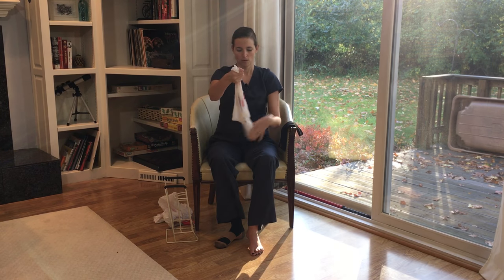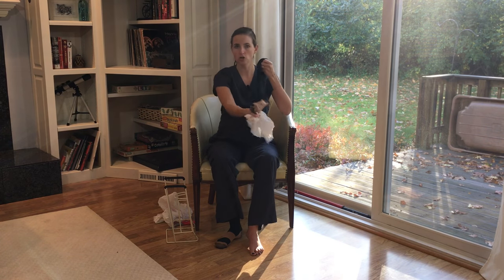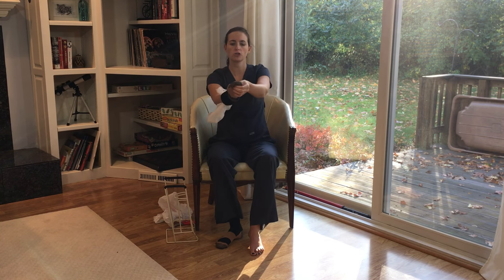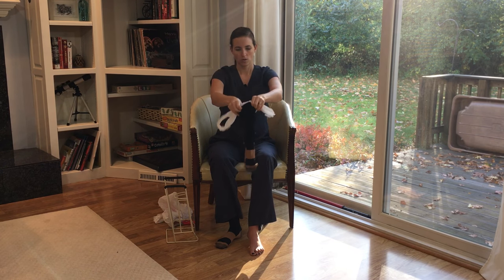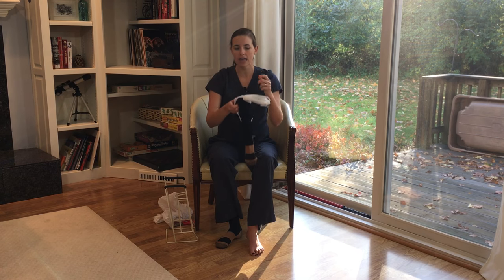So we're going to go back to that kind of shape — the hole is at the bottom. We're going to take our stocking, and the bottom is going to go towards the toe. We're just going to drive that all the way down to the toe, then hold the toe while I pull my hand out so I don't pull the stocking out. You want your toes to be at the bottom of the bag. The opening of the bag is now at the top of the stocking, and we've got the two handles here. We're going to use the bag to help us slide it over our leg. This is extremely helpful if you tend to have stickier skin or you're trying to apply this on a damp leg, perhaps after a shower.